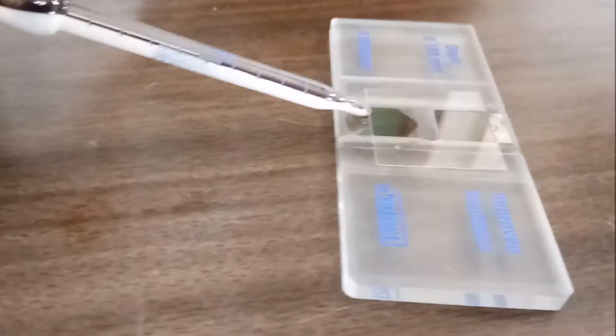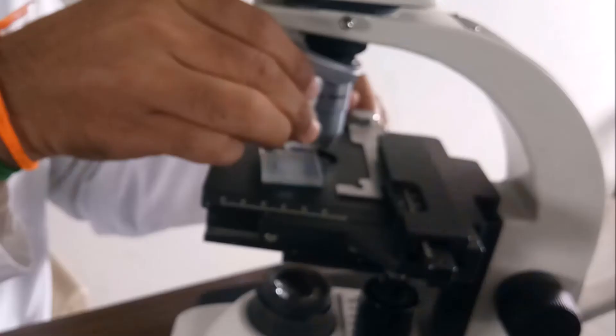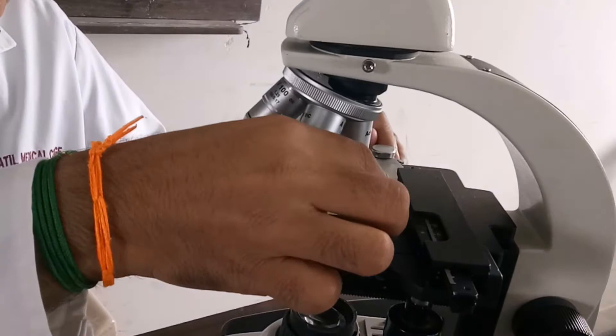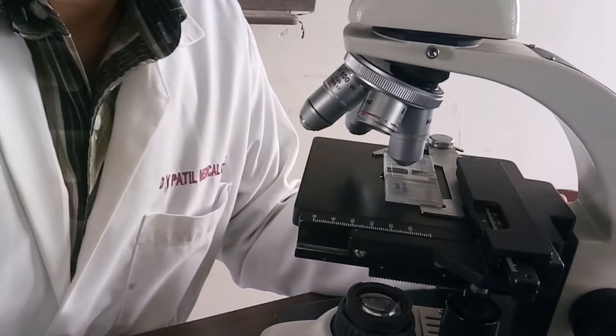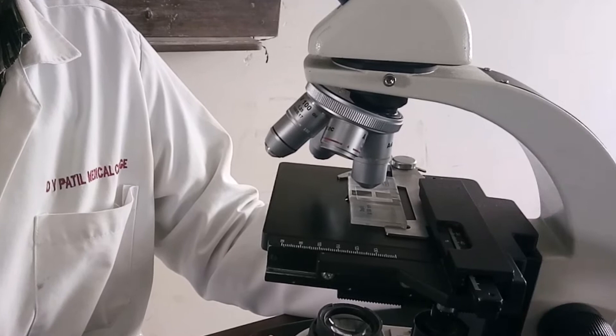Now this is optimum charge. So now we will focus under microscope. Make it low power first and then go with focusing. You have to start that particular counting like this. Follow the L rule.